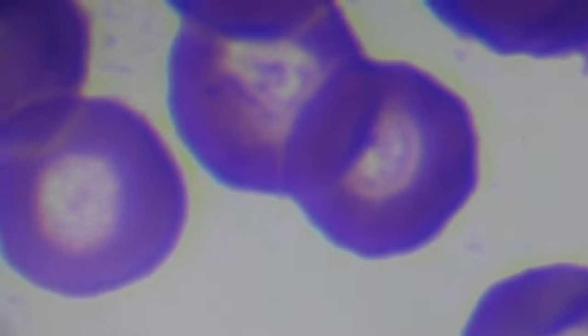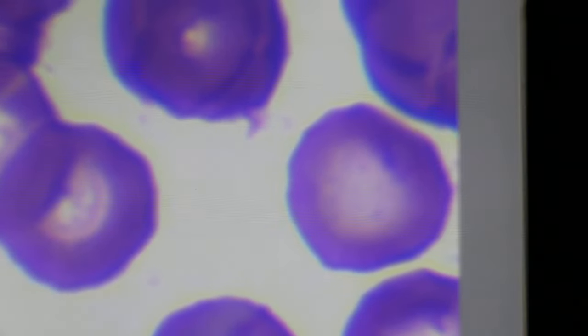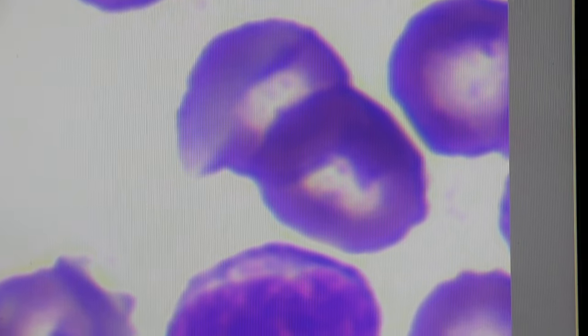Now other than that, it's not very obvious. There are not many parasites inside the red blood cells as 2 weeks ago.